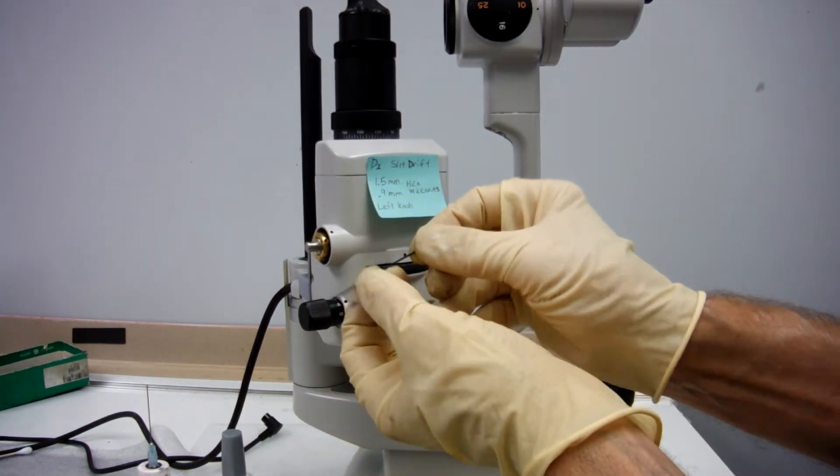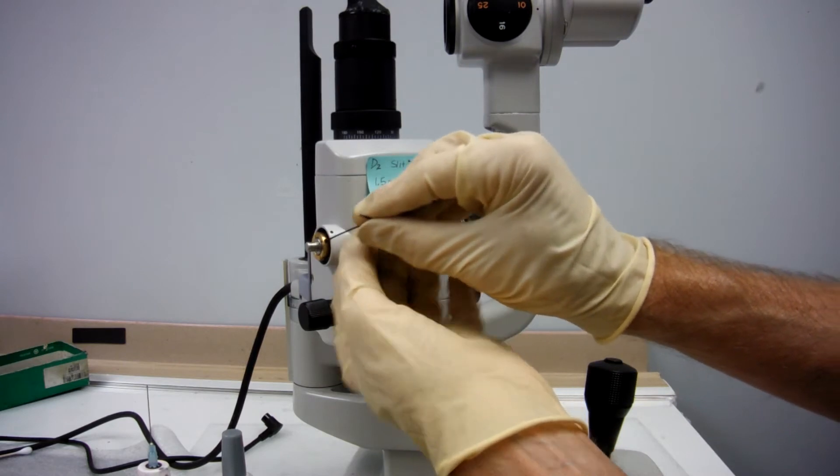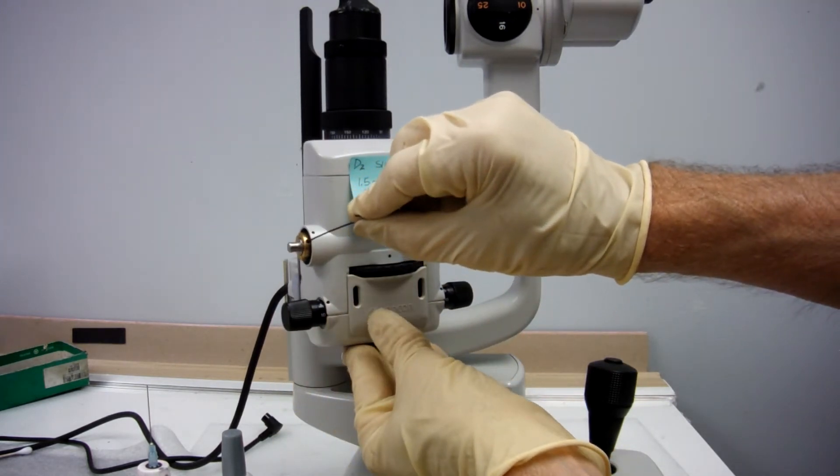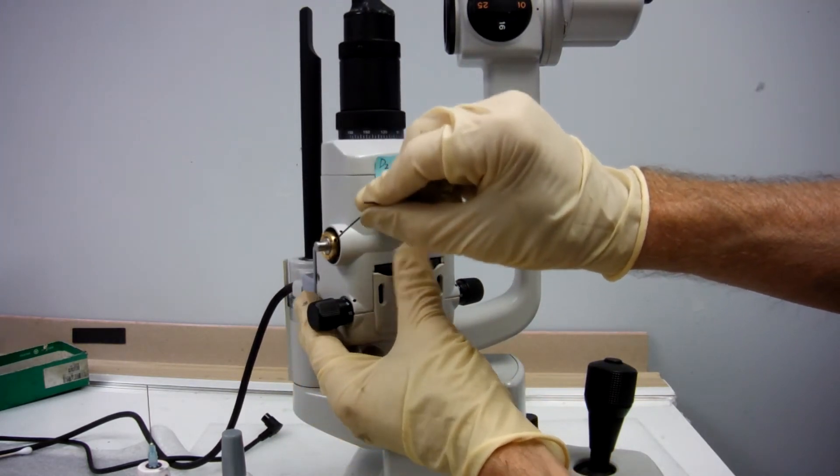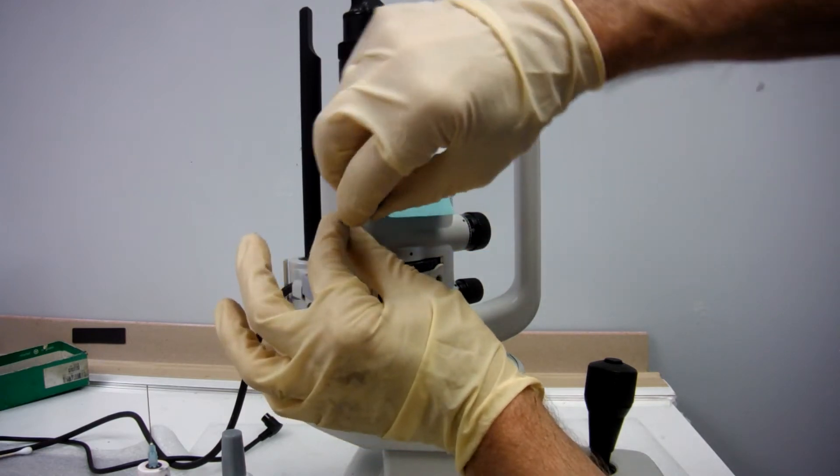Work your little .9mm in that little screw. Loosen it.